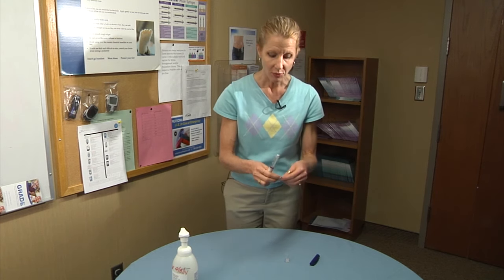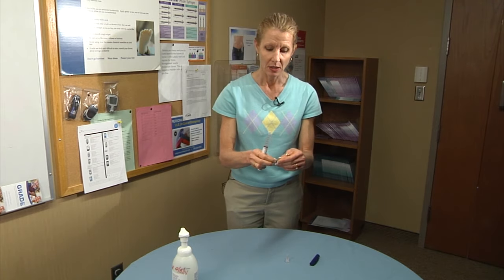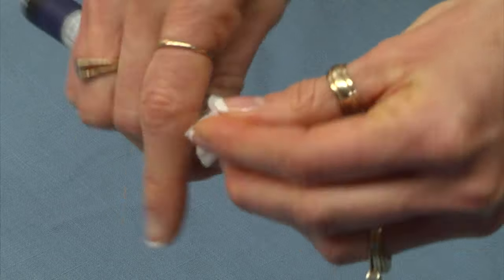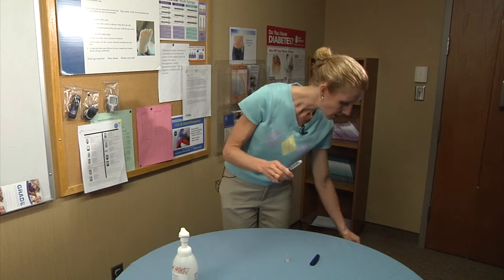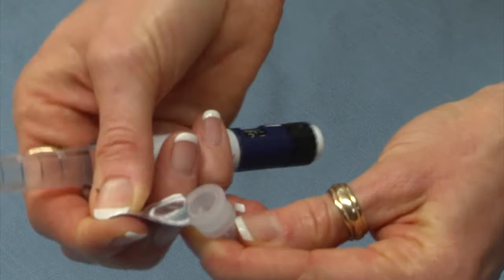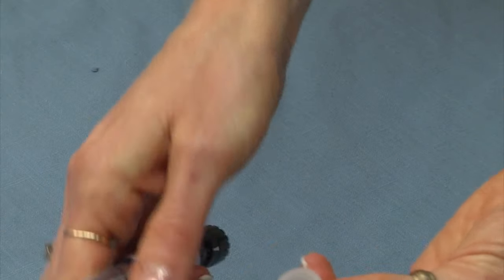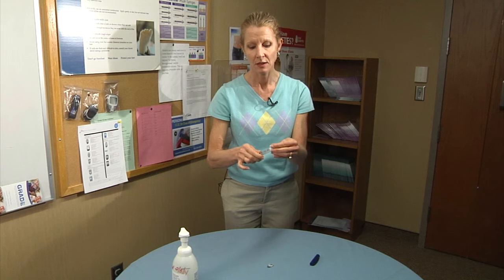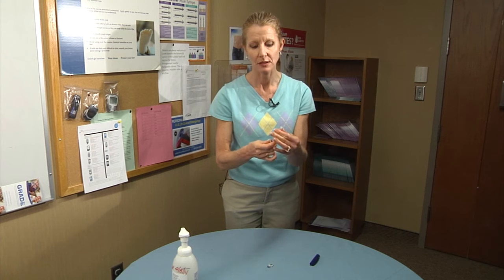If you have clear insulin that does not contain NPH, you don't have to mix — you can skip that part altogether. Use your alcohol wipes to wipe the rubber membrane on the end of the pen, then remove the protective tab on the pen needle. Push the needle into the end of the pen and turn it clockwise to tighten it.